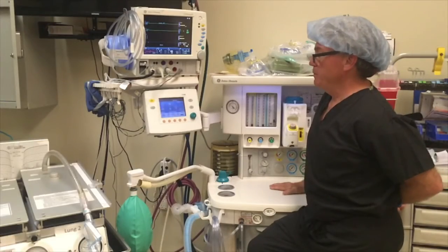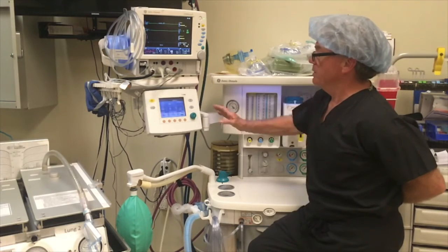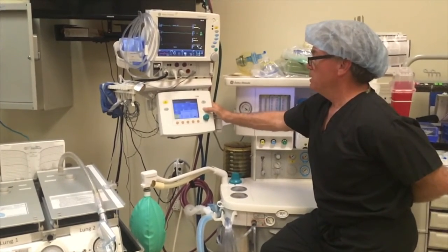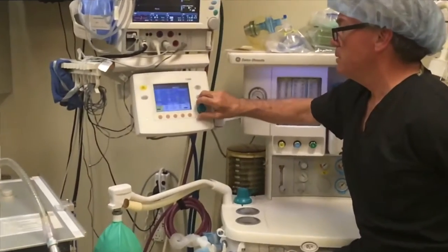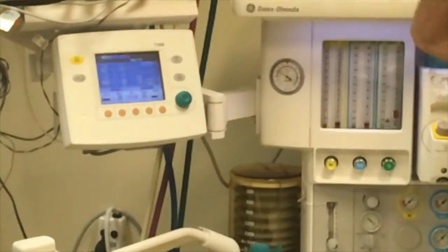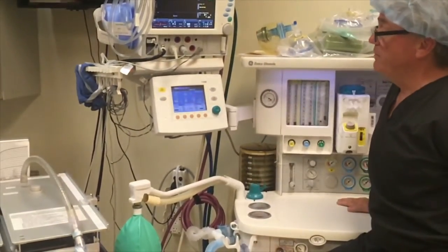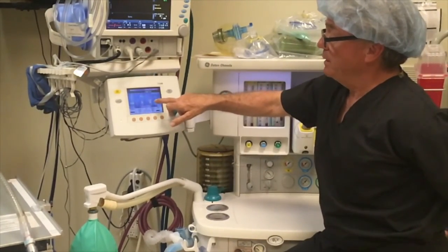So currently we're in volume control mode, and if you are having problems with your plateau pressures and your max pressures, you can switch over to pressure control mode. And peak inspiratory pressure, say about 20. And then set that. And what you want to be aware of is obviously always watch your end-tidal CO2, your exhalation volume, and your minute volume, and see how you can generate those and keep in a lower pressure.